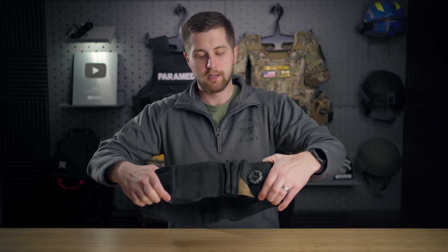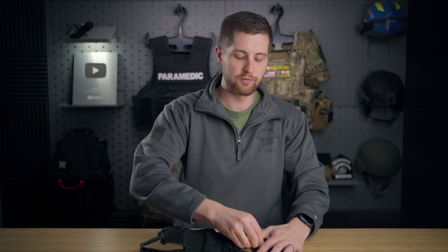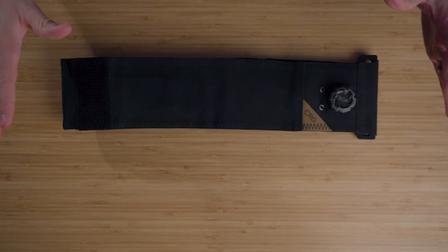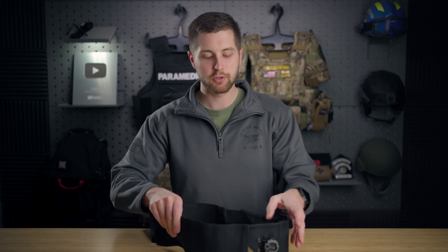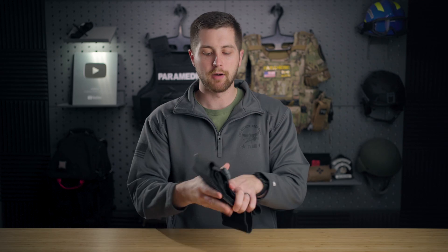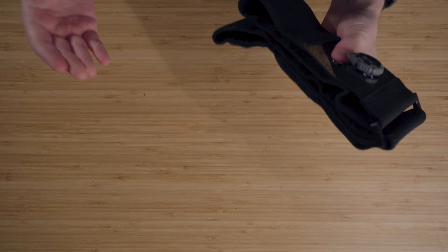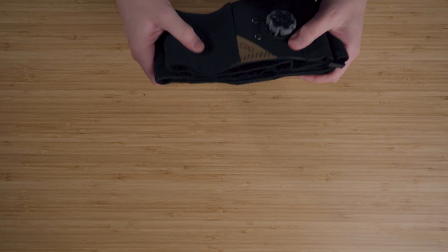This right here isn't going to cause any issues for your patient. The Gen 1 had some issues with pinching, but that's been resolved with the new elastic fabric they have on it. And just like that, we can re-expand it. The rest of the materials on here are super robust — this is a metal clip. I like it because it gets rid of a lot of the human errors. It folds super flat and works really well on the majority of patients.